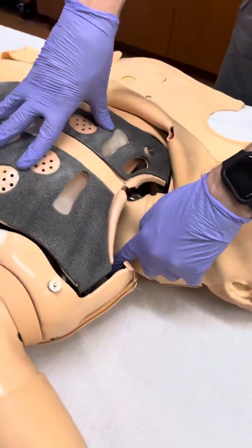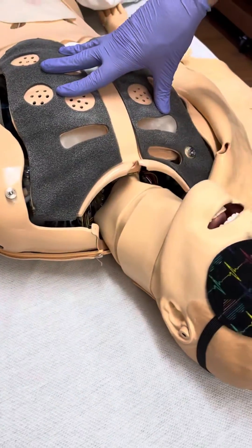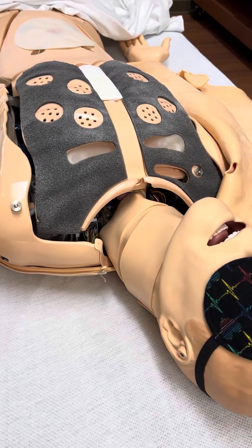Make sure you're oscillating, and then you might need to move the wires over again to get that connection to be in the right spot. So that's it.